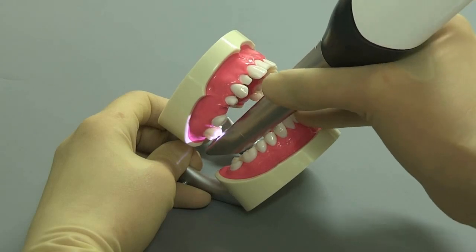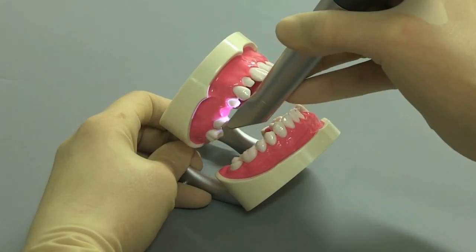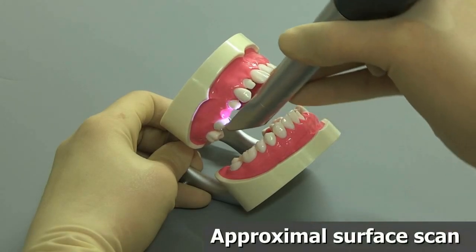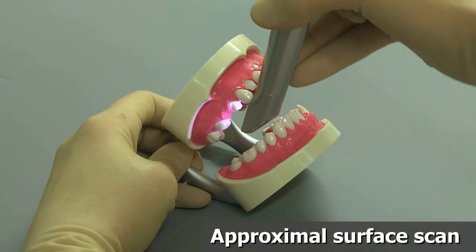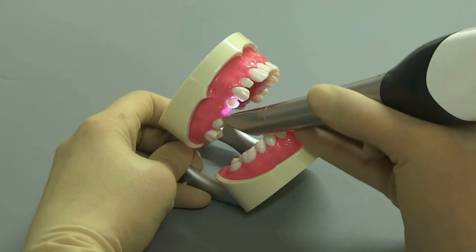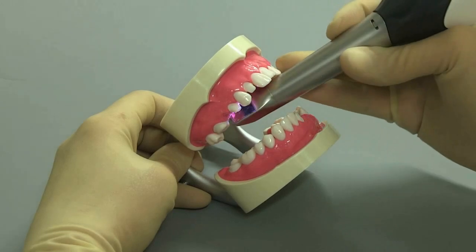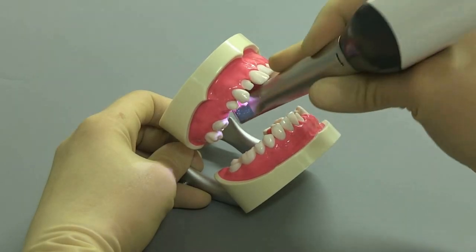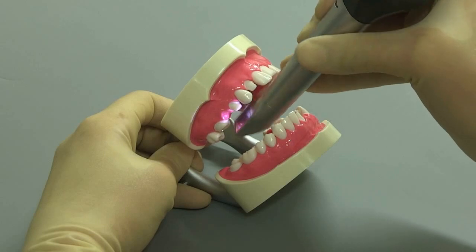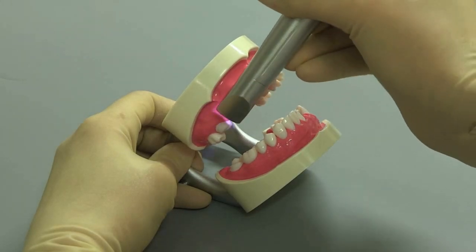Here you see the simulation of scanning a prepared tooth. In this case, acquire the proximal surfaces in the distal and mesial direction by using a wave motion in the occlusal, palatinal and buccal direction over the prepared tooth. Make sure that you acquire data from both sides of the preparation margin.